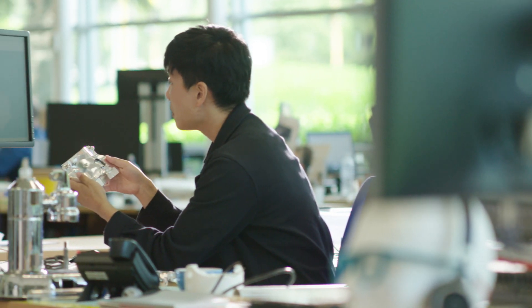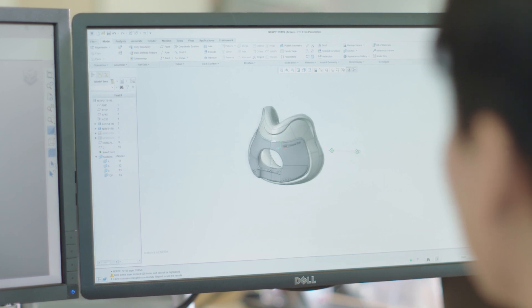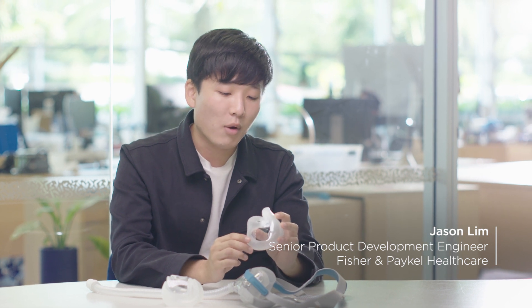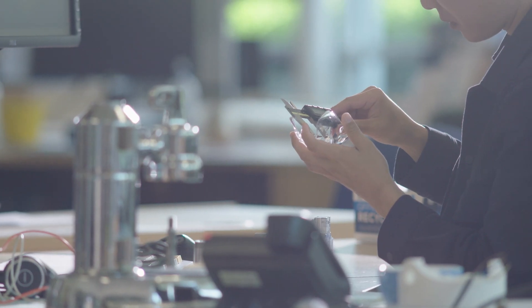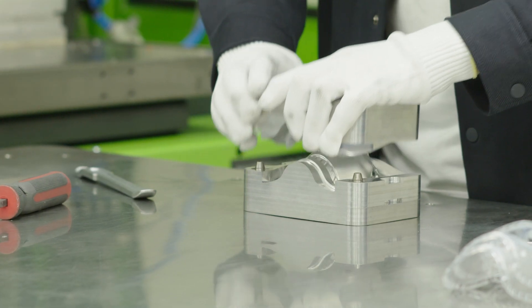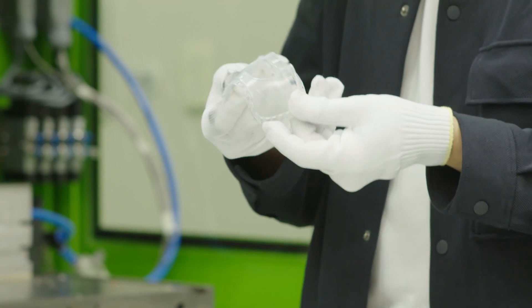With the three different seal sizes of the Evora Full mask, we didn't simply just scale them larger and smaller to get the three different sizes. We tried to make sure that they would fit a wide variety of people. People have all sorts of different nose shapes, different curvatures, and it is quite difficult to design something that seals well for the majority of the population and still be comfortable.